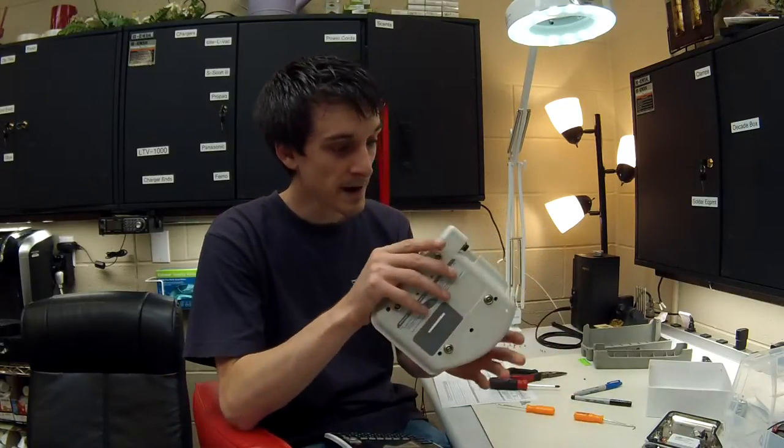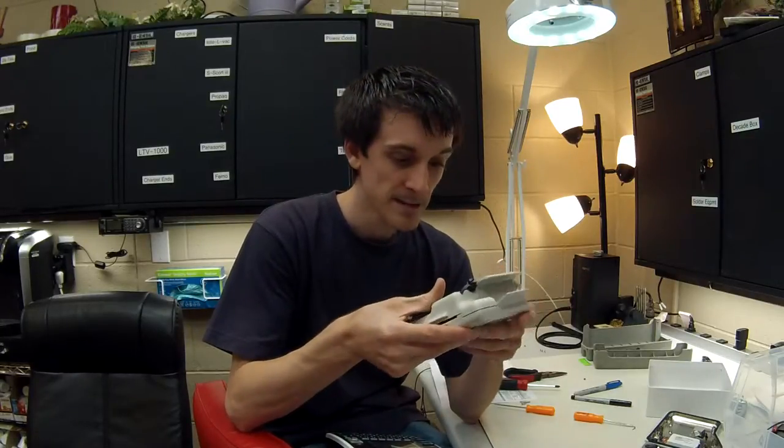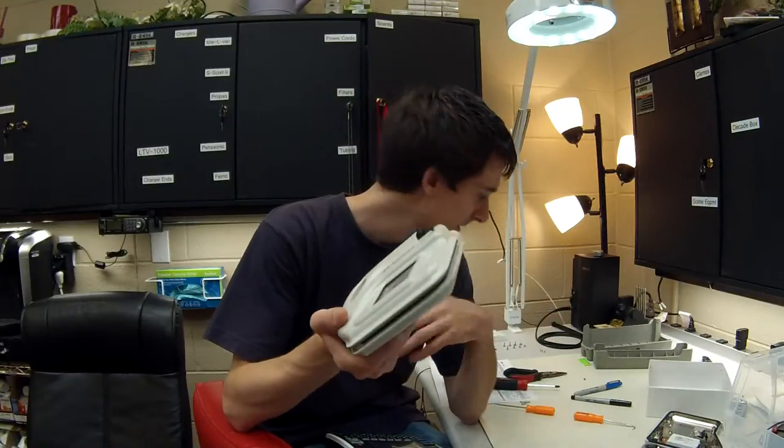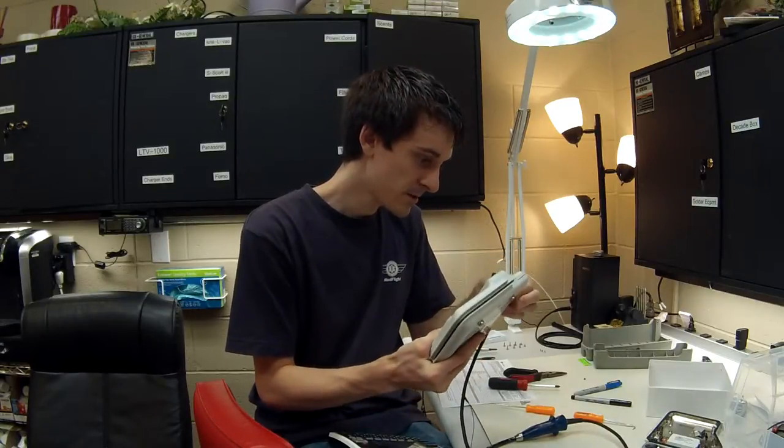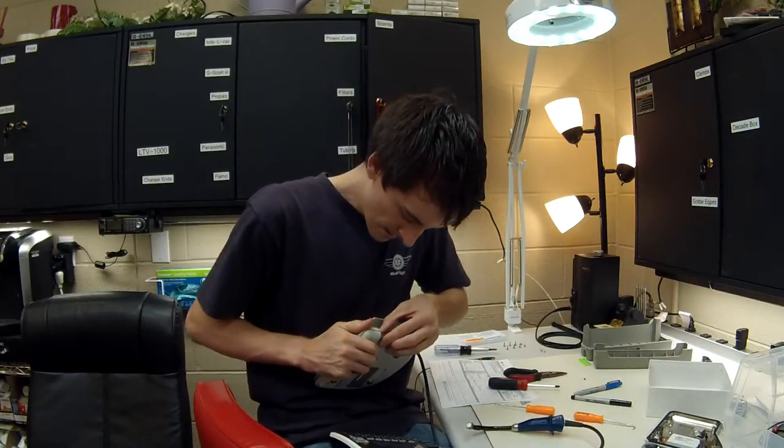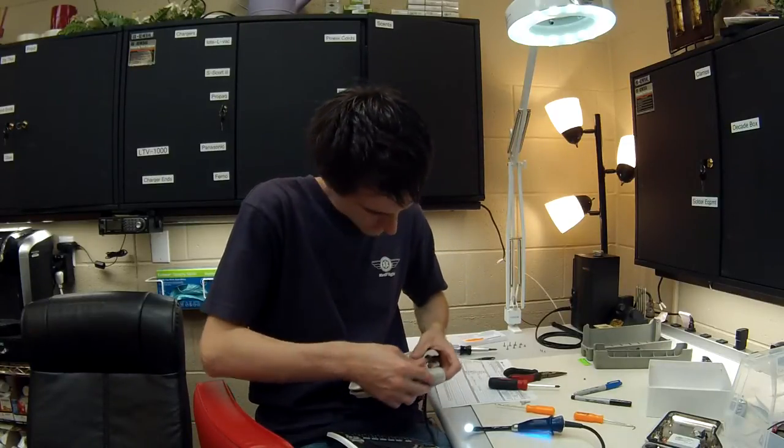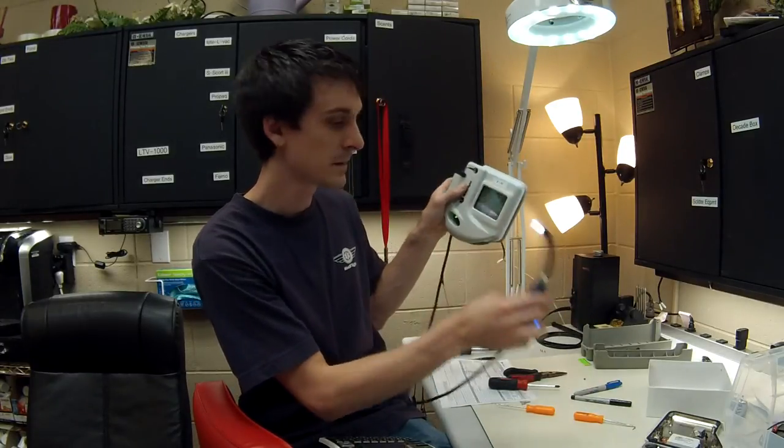But that's that. There's the whole thing's been put back together, back end, front end. I don't think they actually have a front case, but we abuse the hell out of these things, so I'm surprised the front case hasn't broken yet. But everything is golden. So just hook her back up. And if everything worked right, you should get your video going. Yep, here we go, we got her video feed. So thank you very much guys.